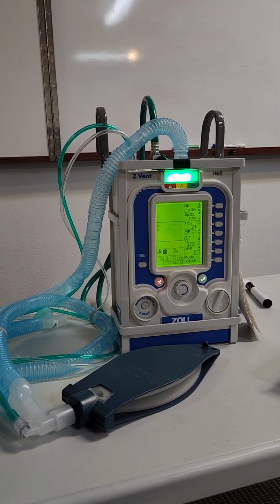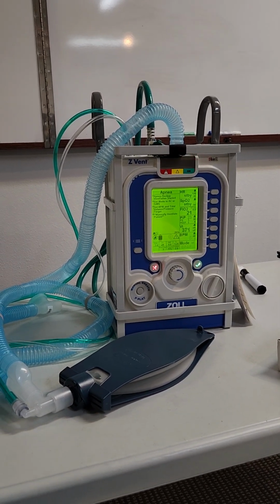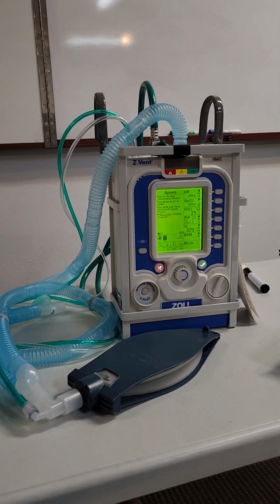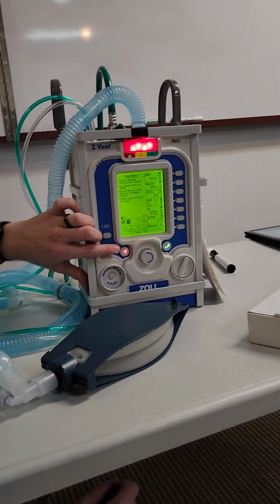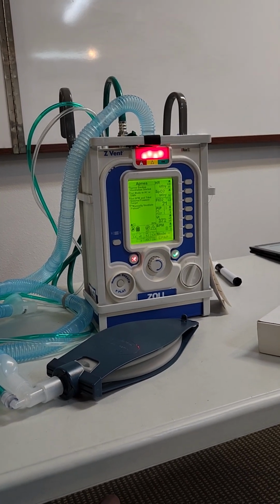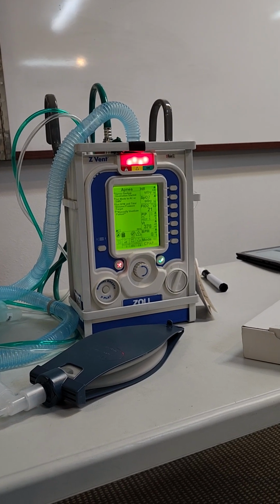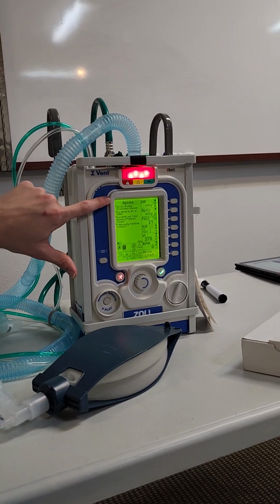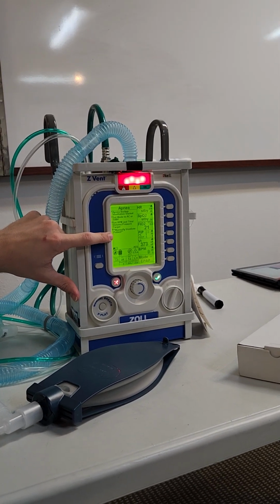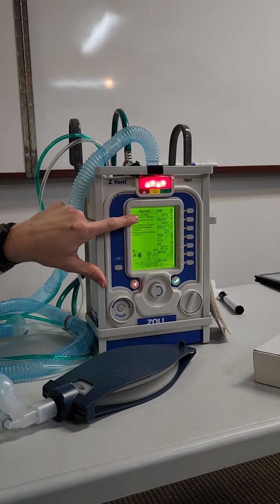So if we leave it here, there it goes. Backup mode started. So this is something the Newport did not have. It did not have that backup mode in there. So what I can do, I can silence it, but it's more or less just a procrastination button because it's gonna keep alarming, right? One thing about this vent is that it will give you options. It'll be like, okay, these are things you can do to fix this alarm. So if you have that alarm, start going down the list.